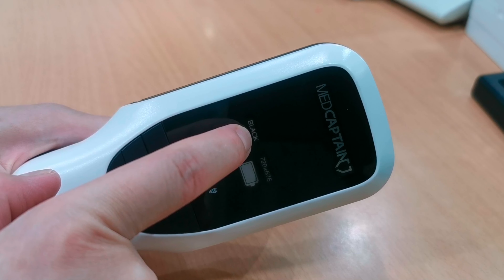We have four brightness levels. By pressing the brightness button you cycle through levels 1, 2, 3, and 4. Next, let's press the size button to see how many sizes it has. We have three sizes: small, medium, and large. You can choose whichever you prefer — the small size is likely for children, and the others for adults.